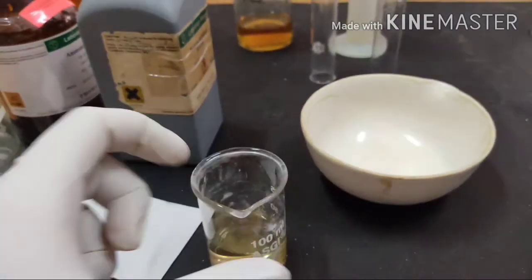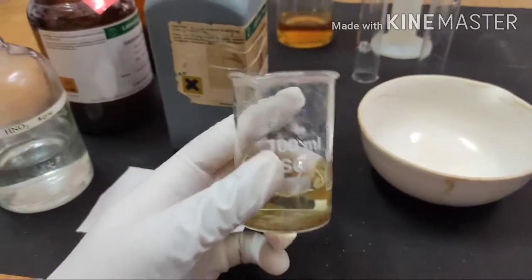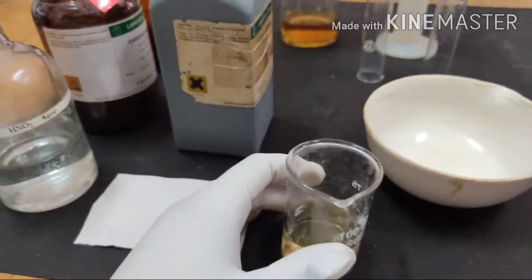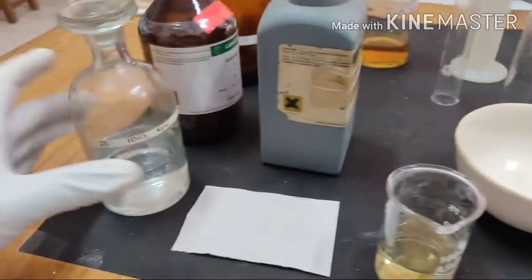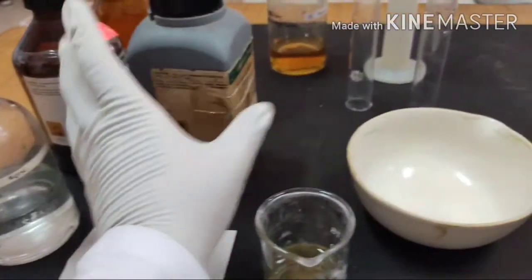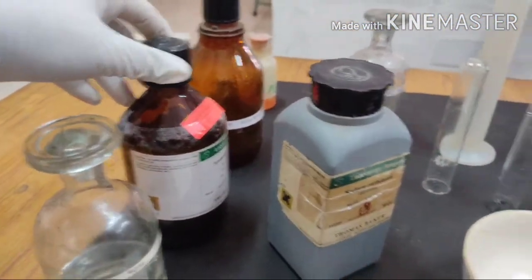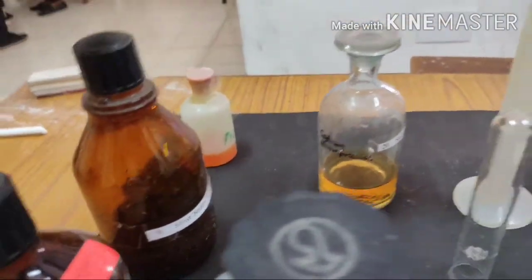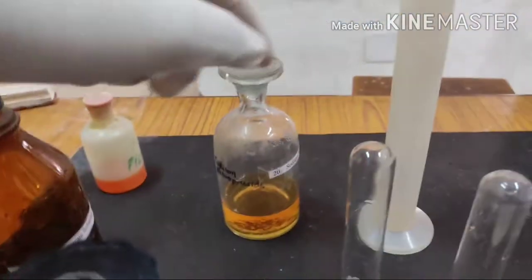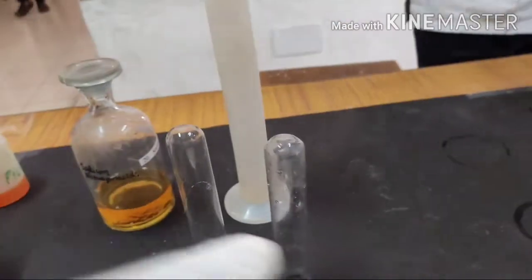The requirements for this experiment are our own urine sample, concentrated HNO3, filter paper, anhydrous sodium carbonate, dilute ammonia solution, silver nitrate, picric acid, sodium nitroprusside, test tubes, and measuring cylinder.